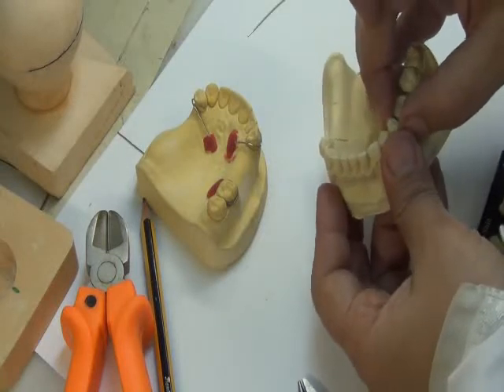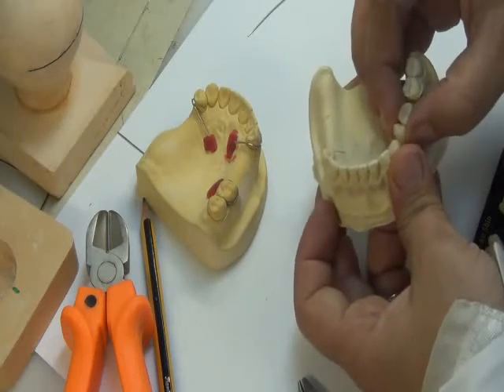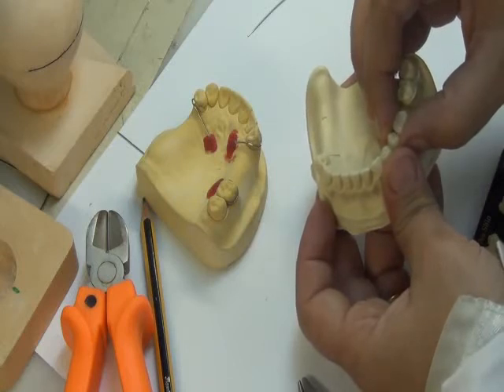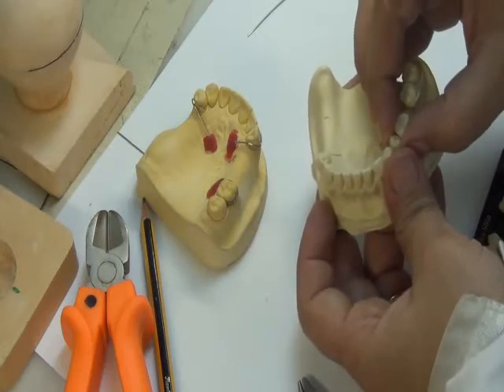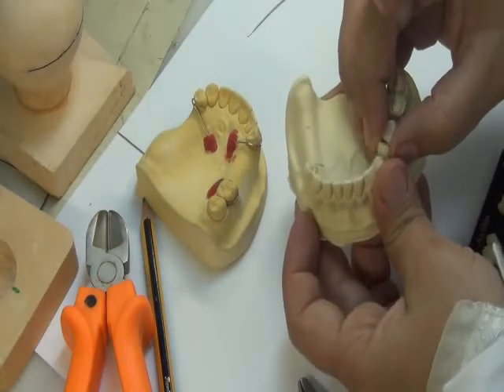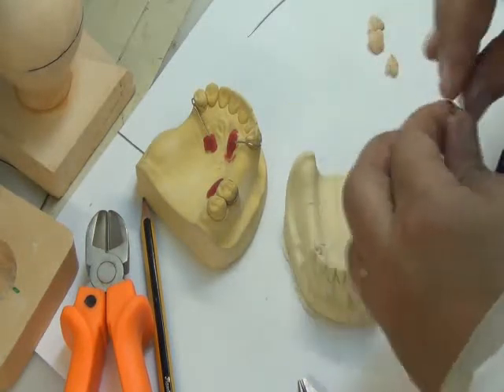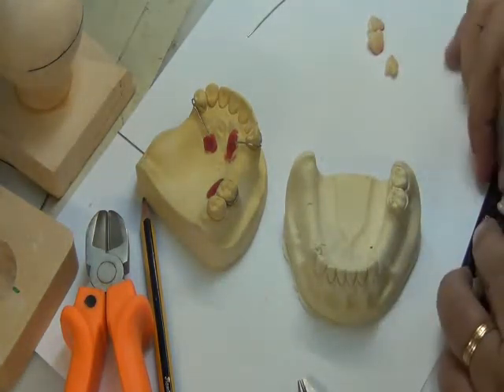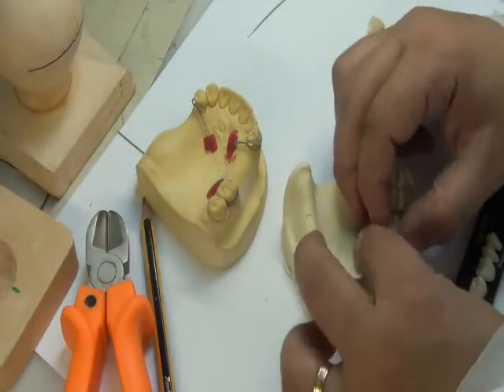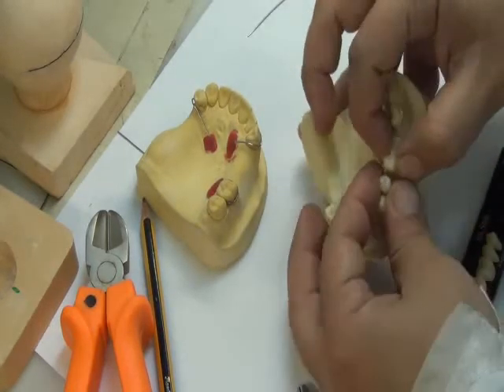Now, in an ideal situation where I'm in a lab and the dental technician is choosing the teeth, they should choose the size that they have. And they should have multiple sizes for multiple teeth. So we want to make sure that the size is correct, so we don't choose small teeth like this. But suppose the discrepancy is only 1 millimeter. That is, the difference between the length of the teeth, mesiodistally, and the length of the bounded saddle is only 1 millimeter. Within 1 to 2 millimeters, it's okay.